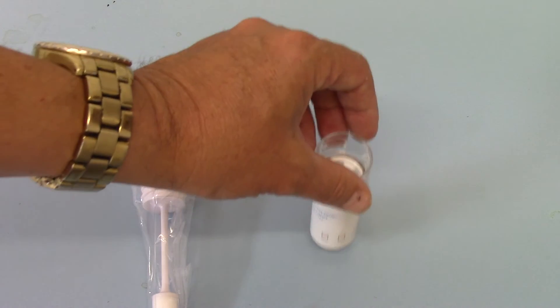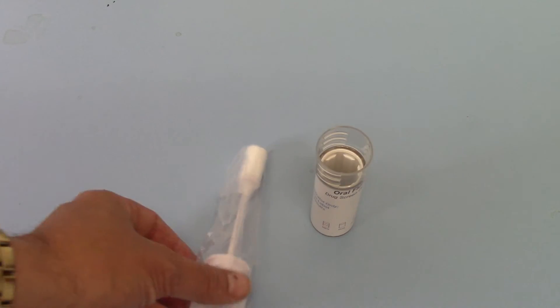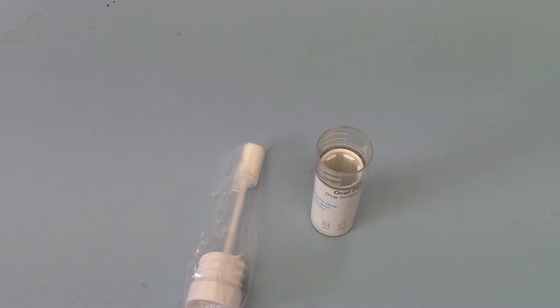So what we're going to do now is saturate this swab in saliva and demonstrate what it's like when you're ready to actually perform the test.